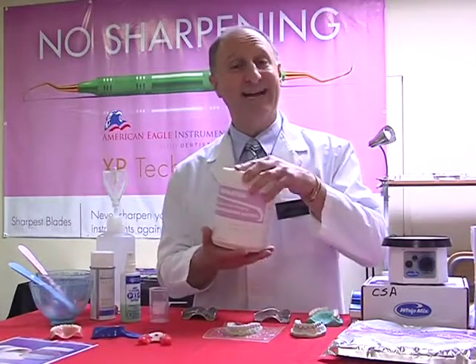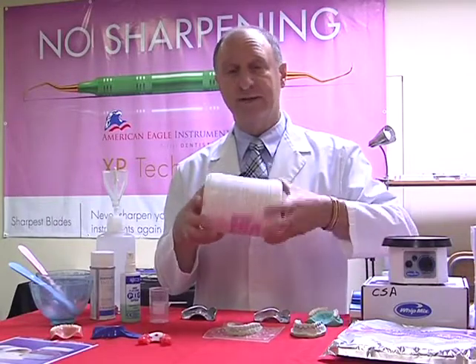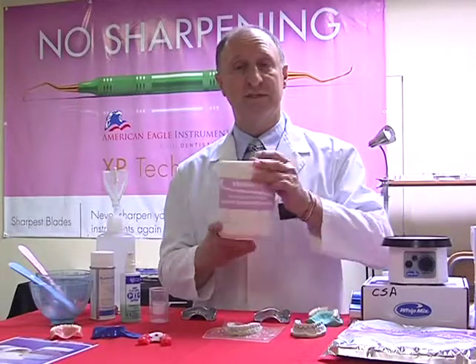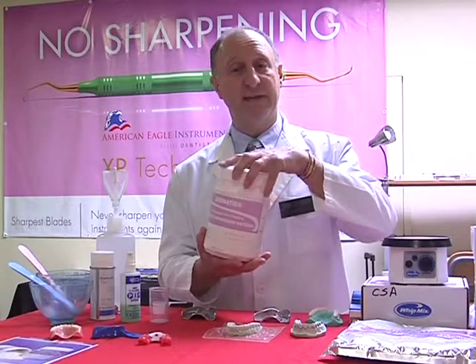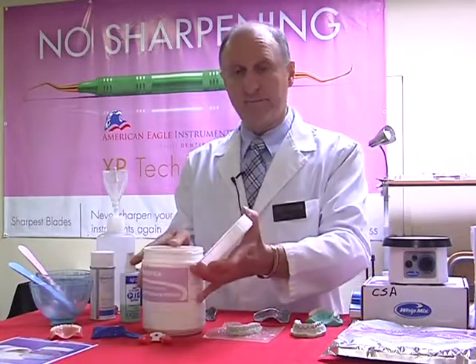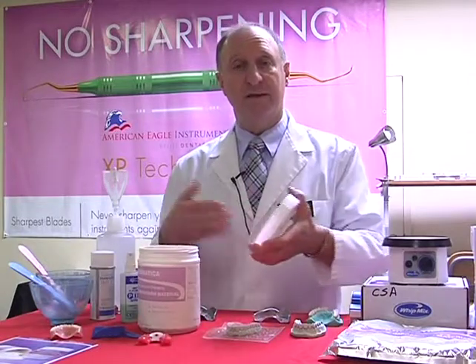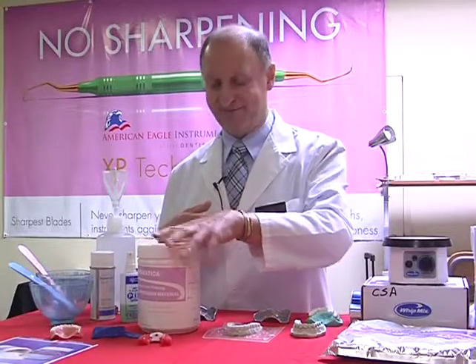So to fluff an alginate, any alginate, we put the canister onto its side and revolve it 3 times. Once it's gone through 3 revolutions, it's fluffed. What we should see when we open the lid is no clouds of dust coming out. That dust, made from a material called diatomaceous earth, can enter the lungs and cause a problem of silicosis. So we try to stay away from that.